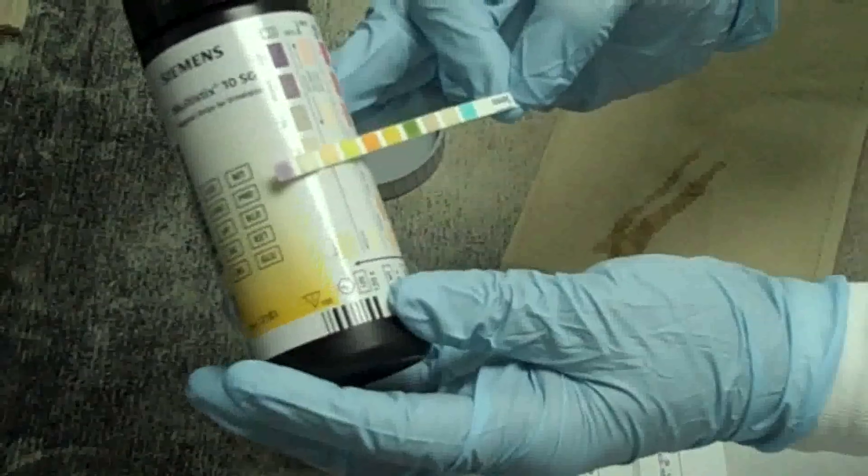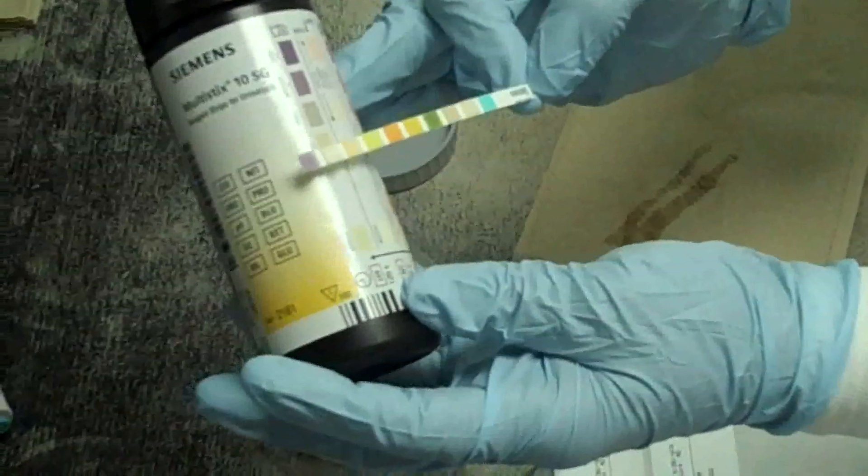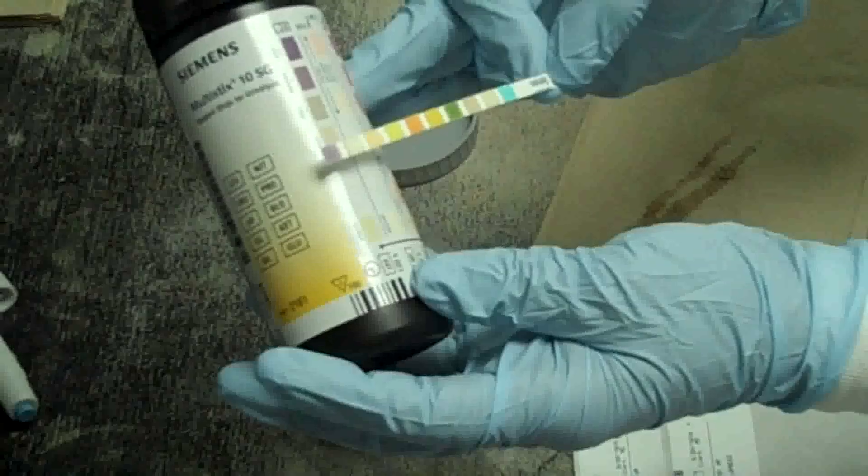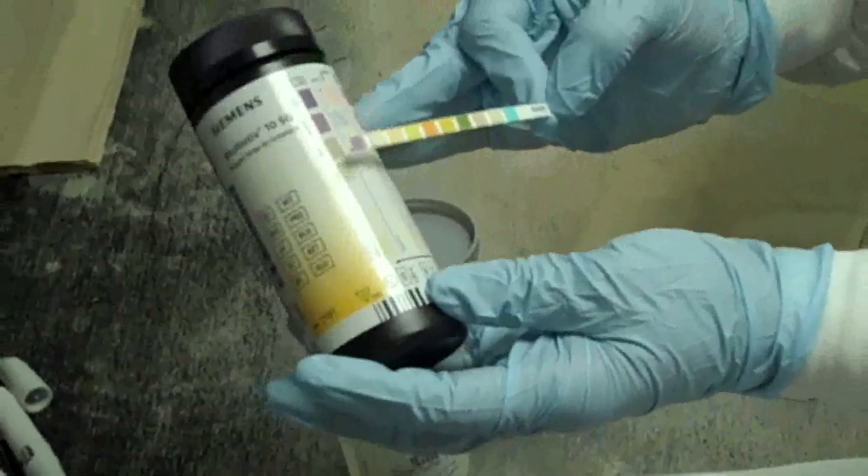Nitrite. And at two minutes, we will read our leukocyte esterase. Do not read your leukocyte esterase prior to the two-minute test.